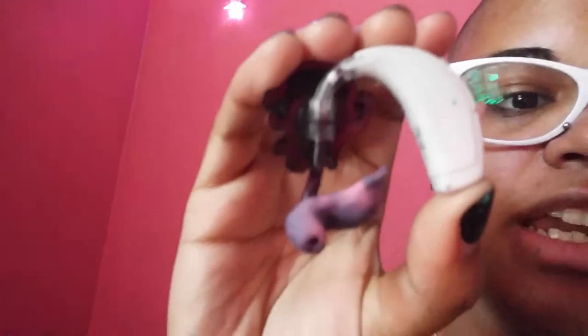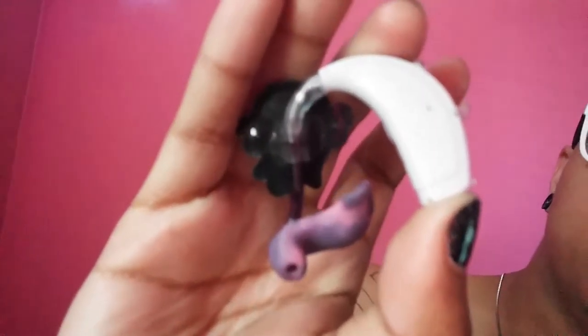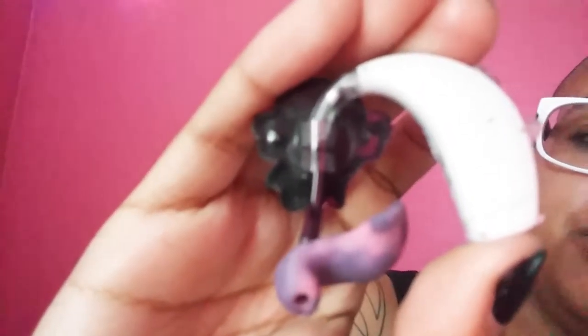I ordered the ghost and the bat and I have really small tubing. If you have really, really tiny tubing, I wouldn't necessarily recommend them for little tiny babies, but I do have some short tubing. You can kind of see they have that little clear thing on the back that you use to attach them to your hearing aid tubing. Those little plastic tubes on the back attach to your hearing aid tubing. They show you to attach them by taking the tubing off of your ear hook, but what I did is I took the tubing out of my ear mold and put the tube binder on that way, because getting the tubing back onto the ear hook is a huge pain. So instead I did it by the ear mold, and they were really, really easy to put on.